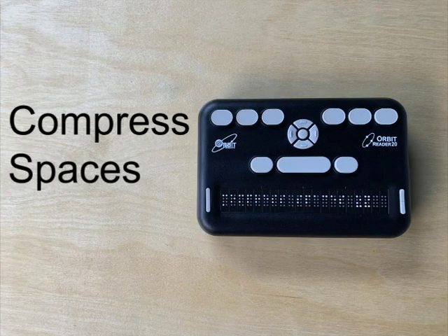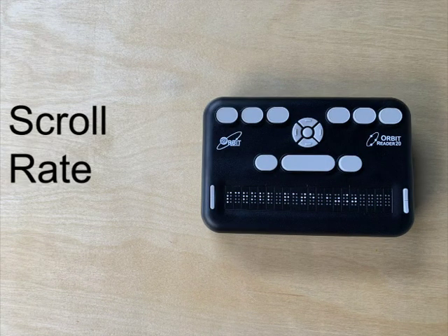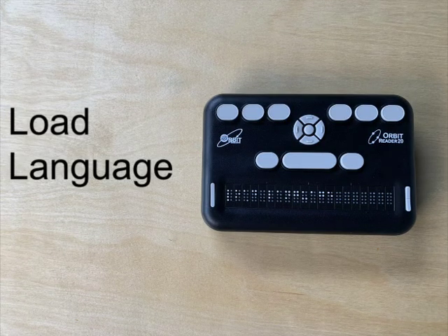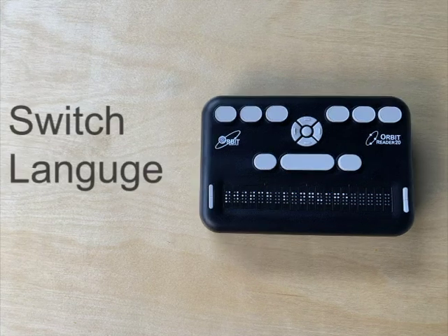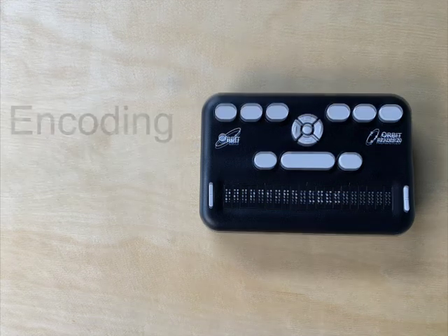Compress spaces. This toggles the elimination of superfluous blank lines and spaces in text. By default, this is set to on. Scroll rate. This lets you adjust the scroll rate while reading. Load language. This is used to upload language files to the flash memory of the Orbit Reader 20. Switch language. This lets you change between a loaded language and a default English language.